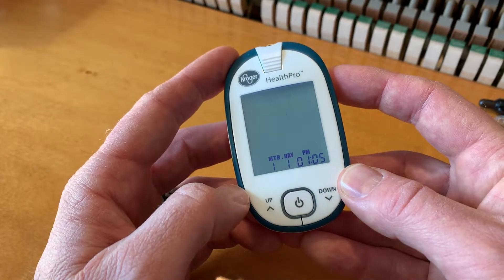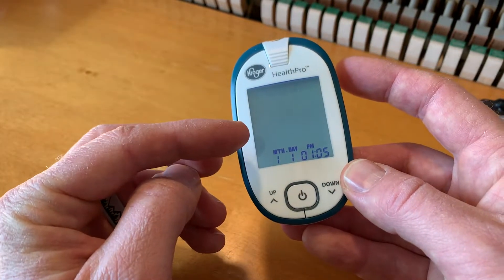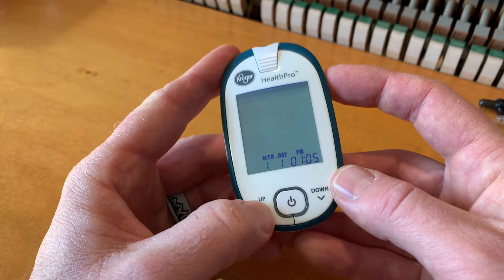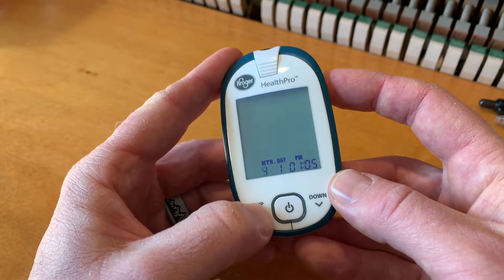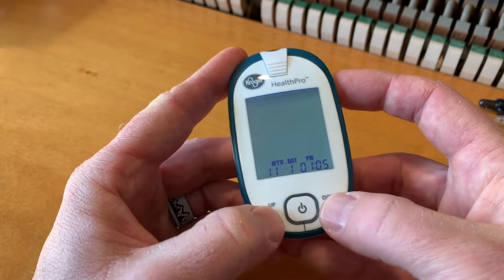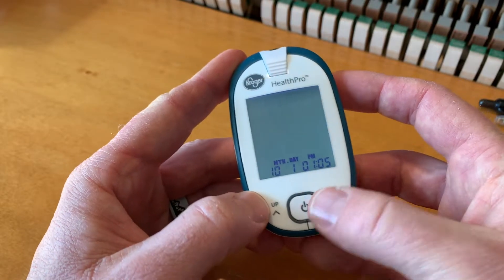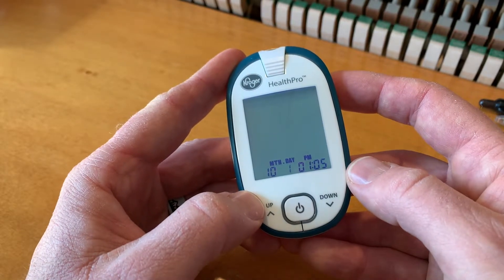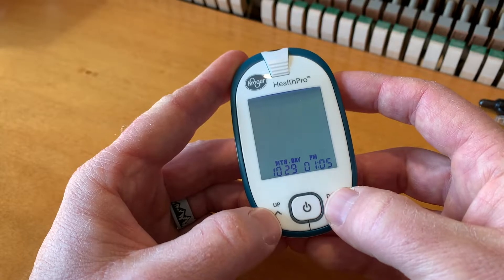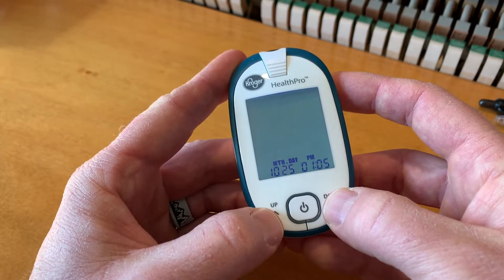Hit the power button again. And now we're going into the month, day, and time. For the month, we are currently in October, so I'm going to do 10 there and then hit the power button again. For the day, we are on the 25th of the month.